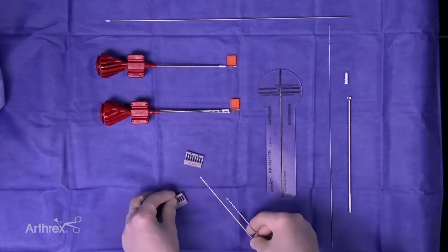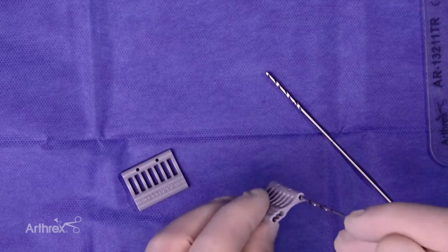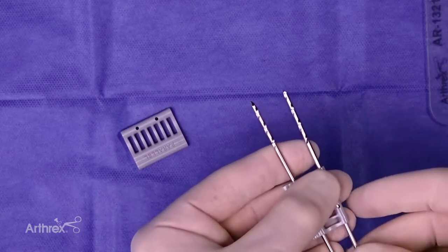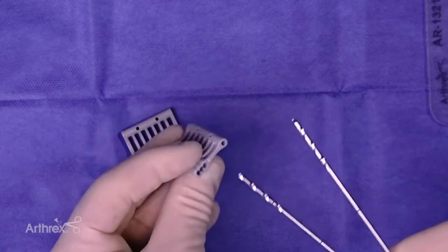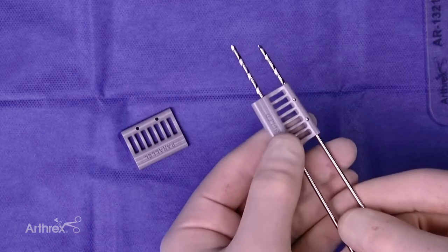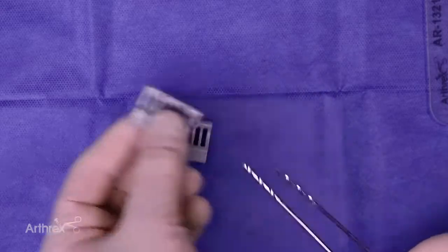There's also a divergent option. You put your shorter pin in at the same distances — 15, 17.5, or 20 — and you can get some divergence of your pins. If you flip this around, you can get convergence of three degrees. So either divergence or convergence with this guide if you choose to make them not perfectly parallel.